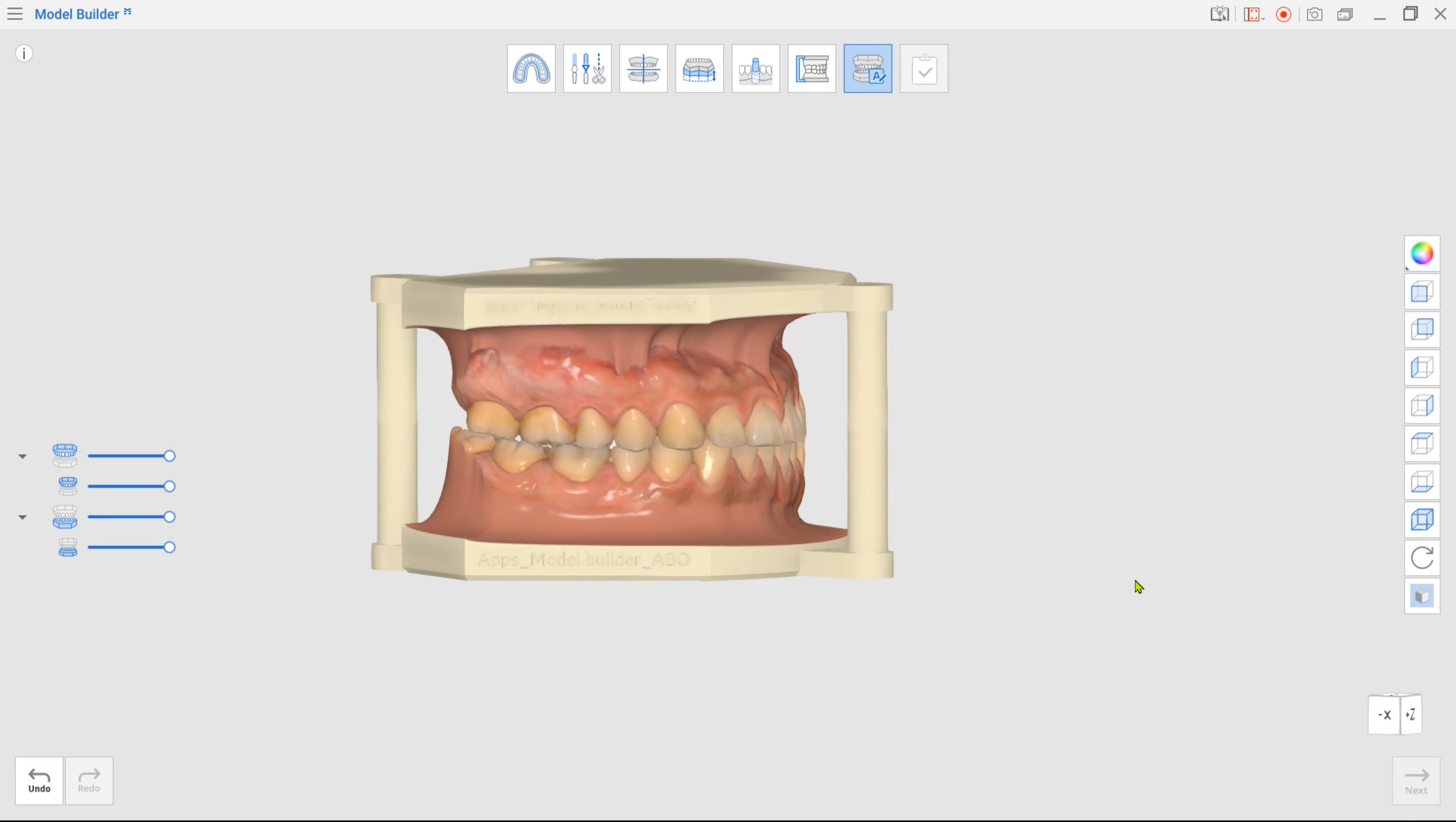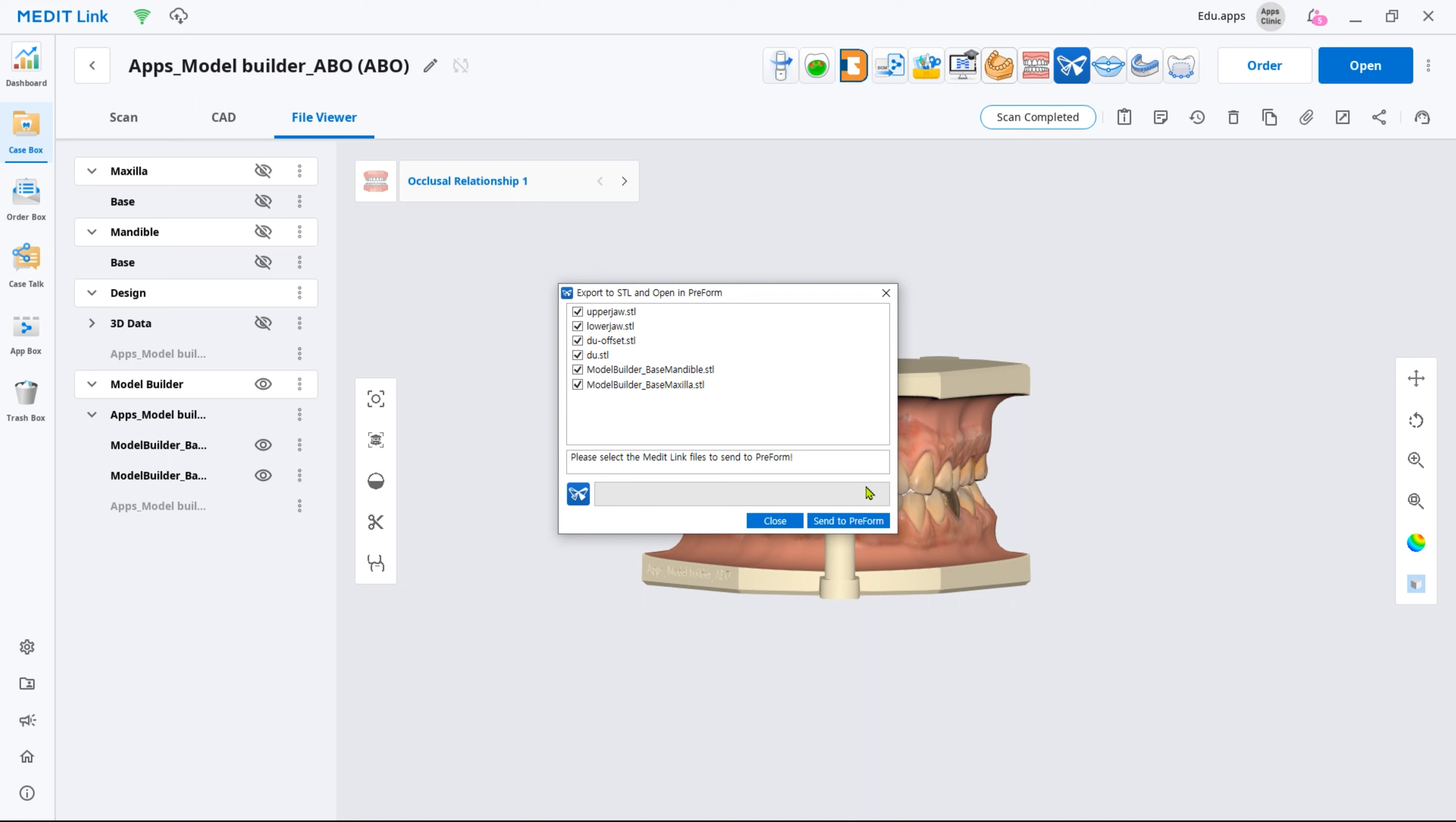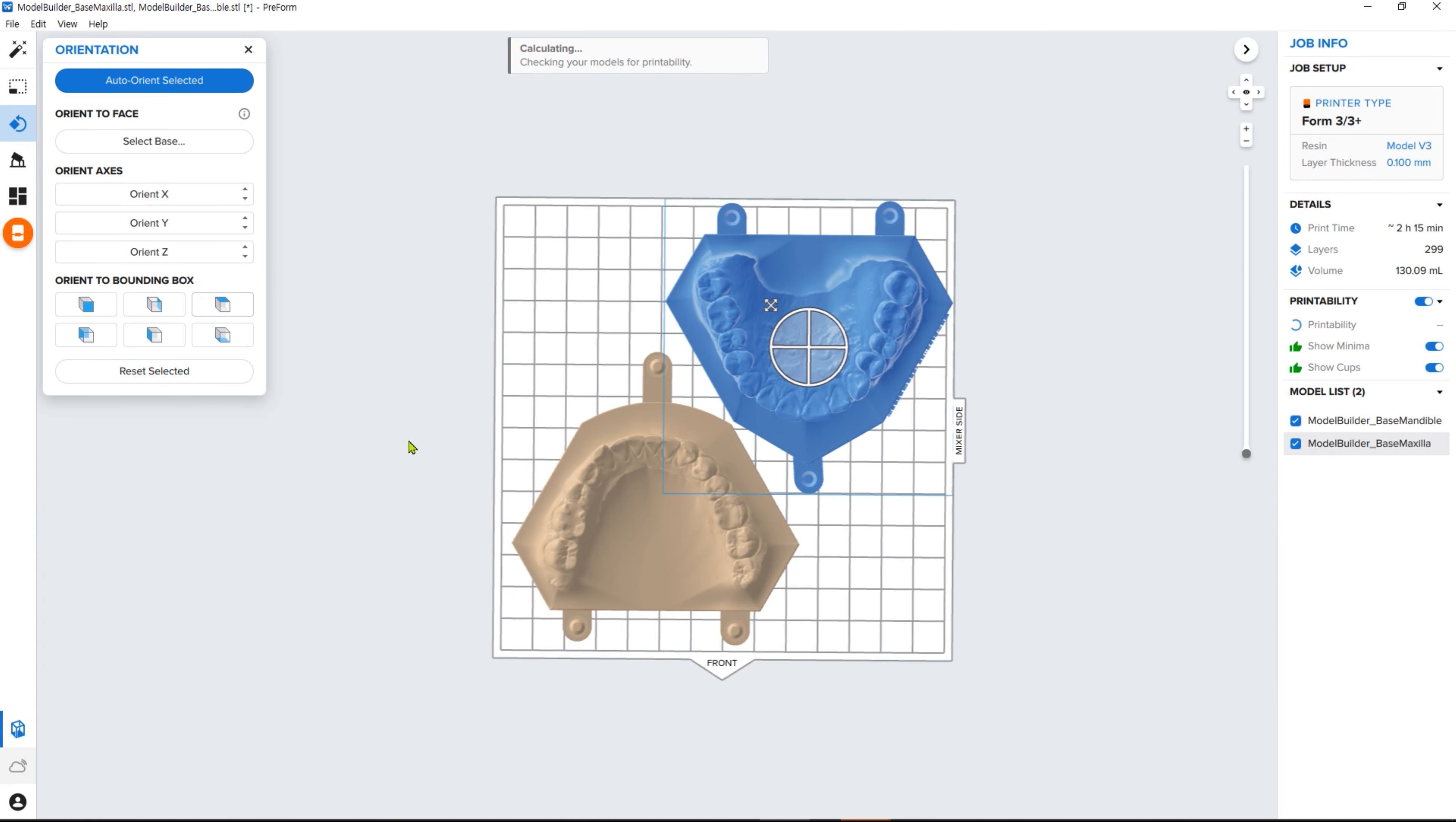Now you have a 3D printable model. If your 3D printer manufacturer has integration with Medit, you can find their app in our app box. Install it to export the completed project file directly from MeditLink to that CAM software. Select the file you have just created and export it to prepare the model for 3D printing.